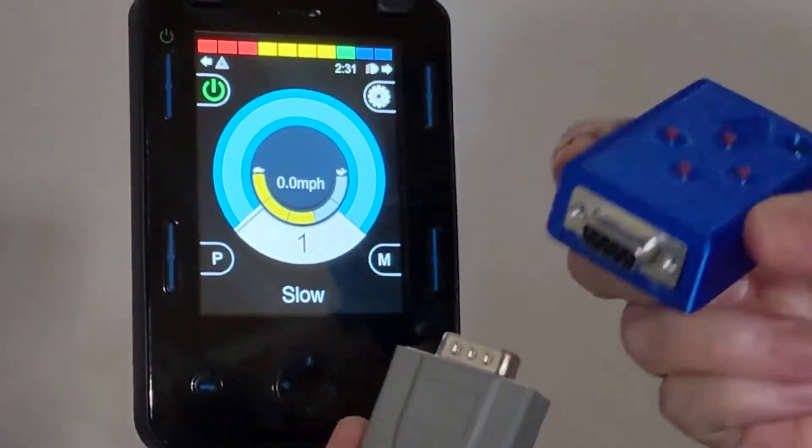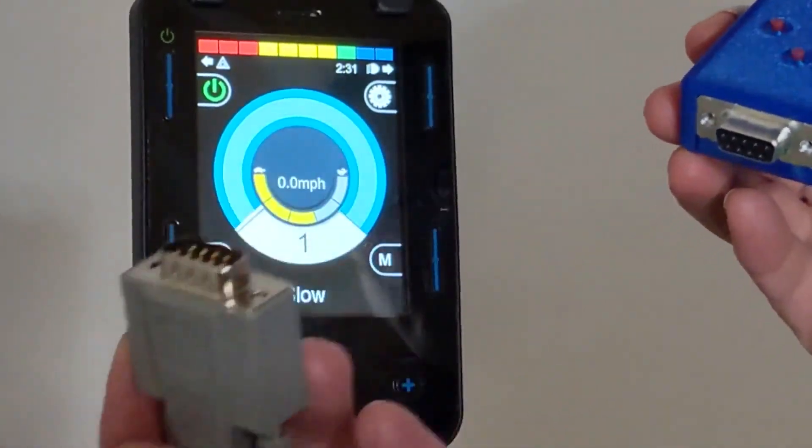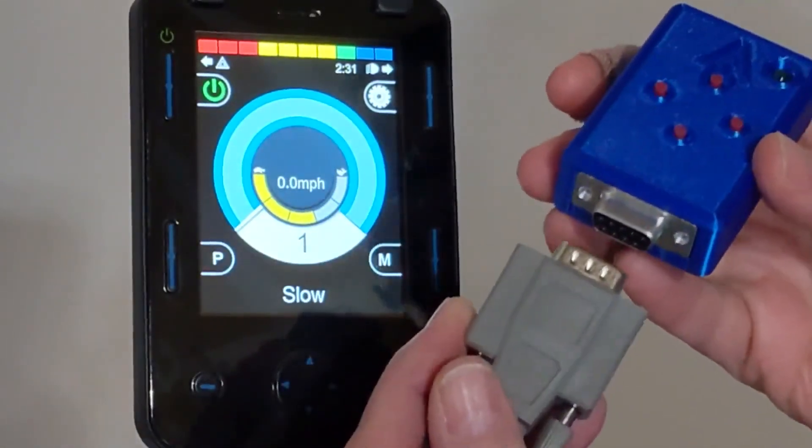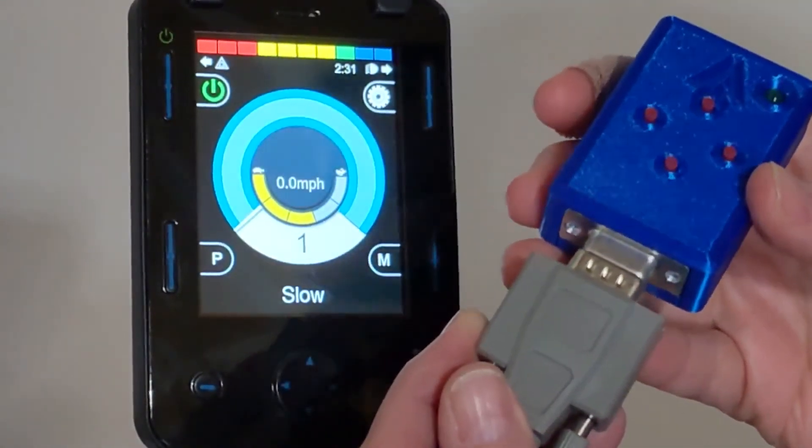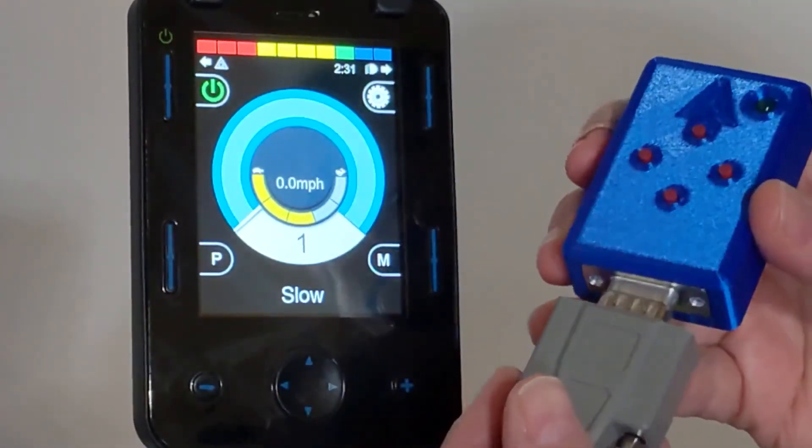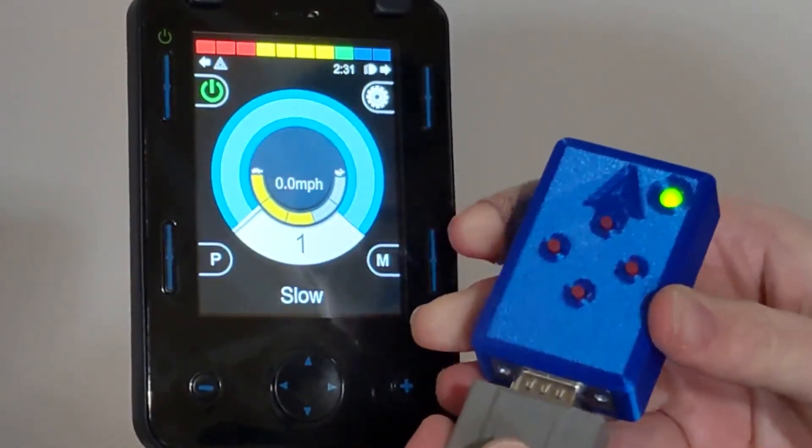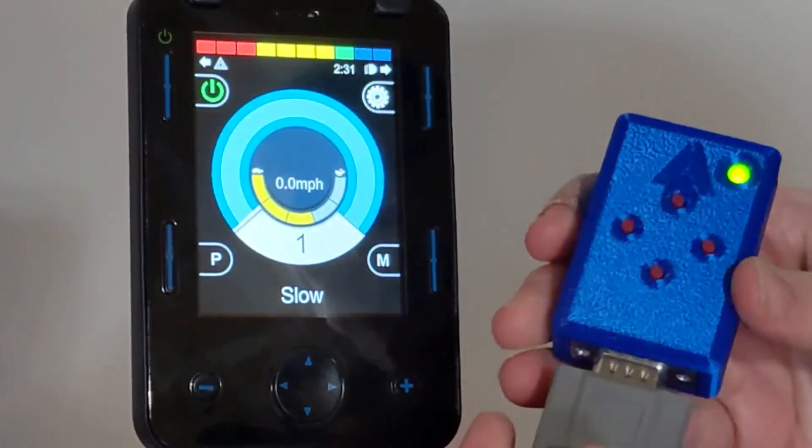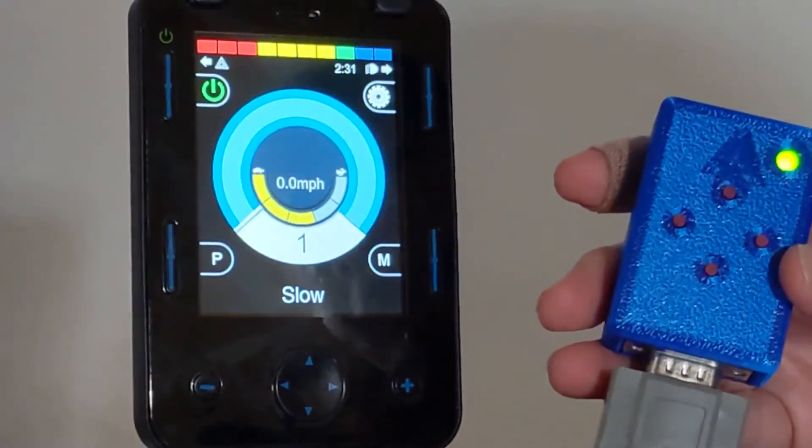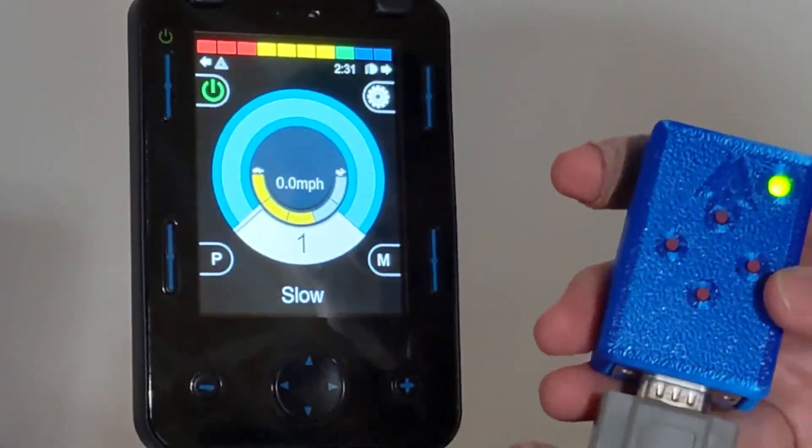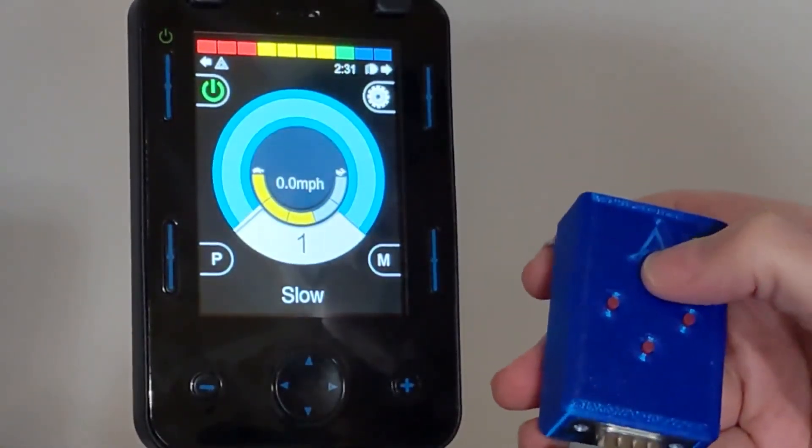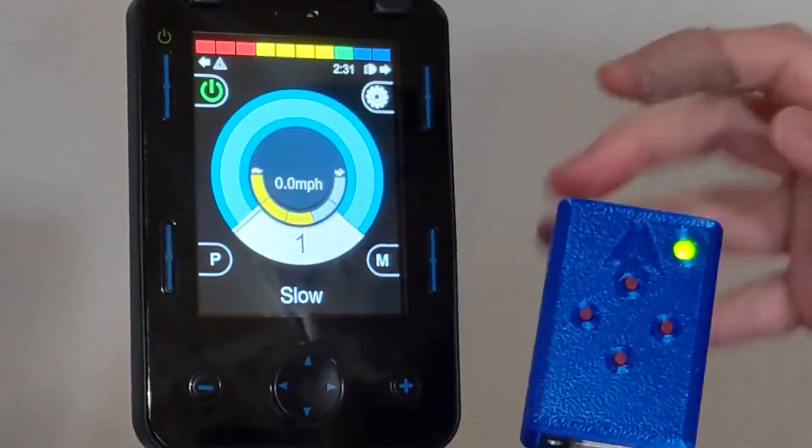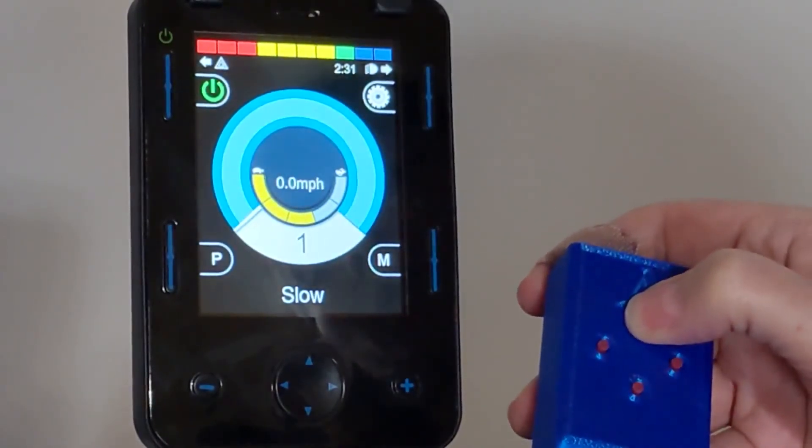We can go ahead and use our tester device and connect it to the 9-pin cable from the back of the Omni 2. This will allow us to make sure that the chair is configured correctly before we even install the ADT. So if you point the arrow up, that means go forward.